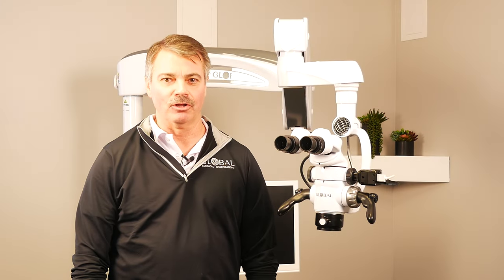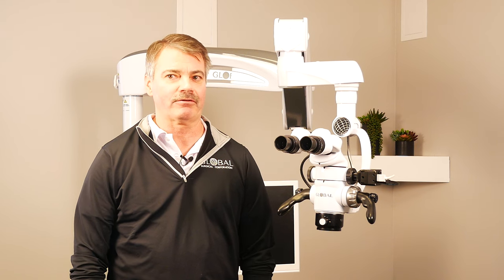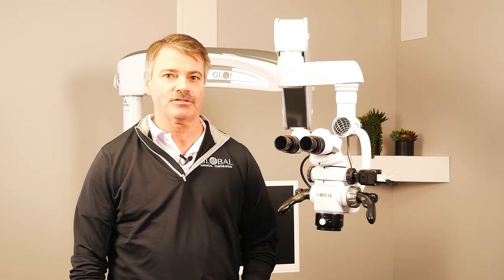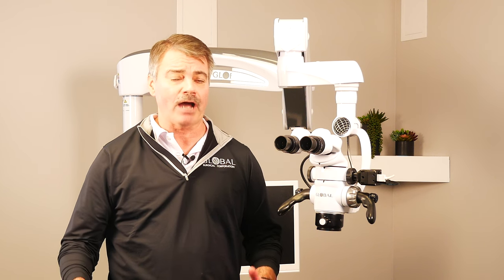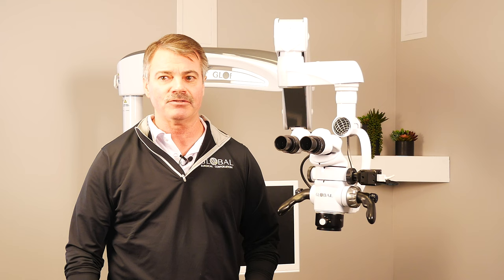Hi, I'm Sean Ryan with Global Surgical. Welcome to our brief introduction to the Global A-Series Microscope. Today we're going to discuss the many benefits of using a microscope in a dental practice, how to use specific options of the microscope and components, and then go over the many features of our Global A-Series Microscope.